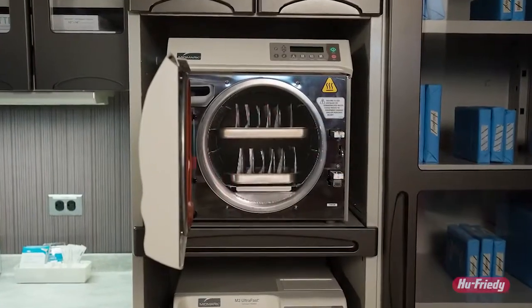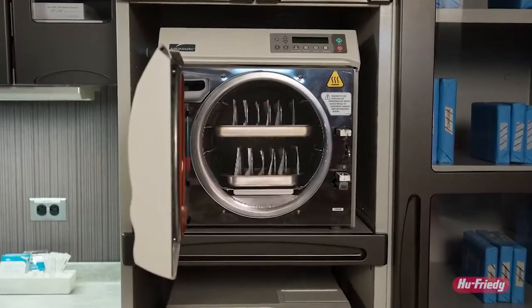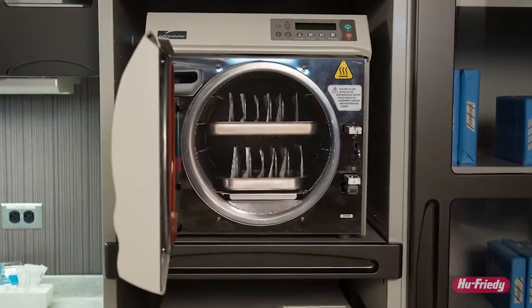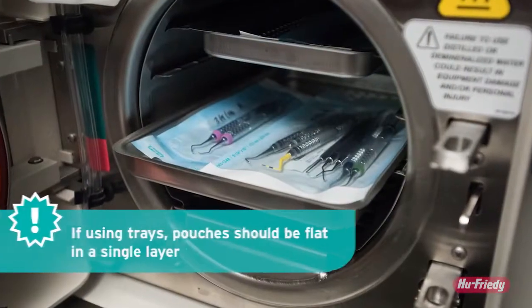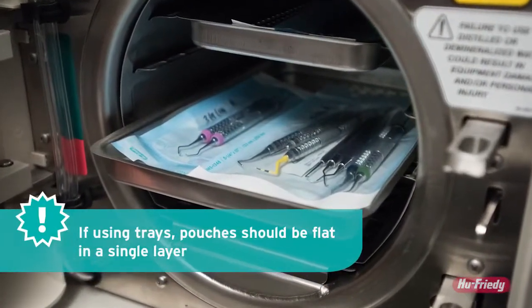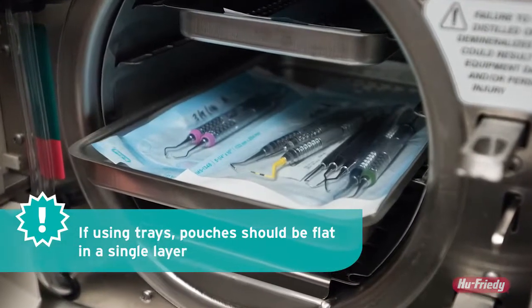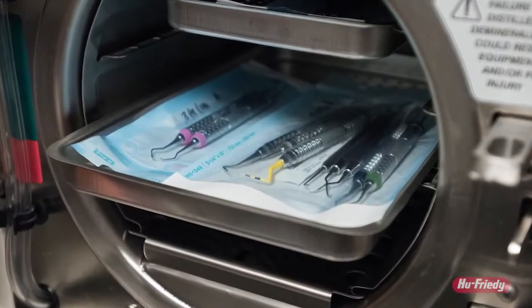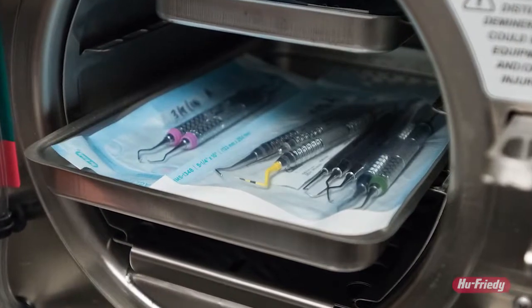If using pouches, optimal placement of the pouches should be on their edges and next to each other in a pouch rack. Follow manufacturer's instructions regarding loading of pouches in a single layer on trays in the unit. Some units recommend paper side up, while others recommend paper side down.